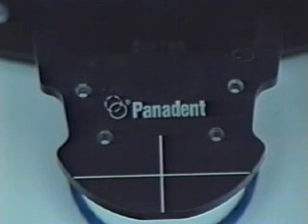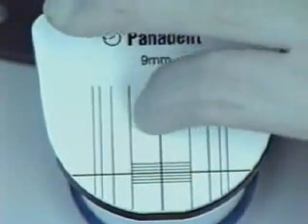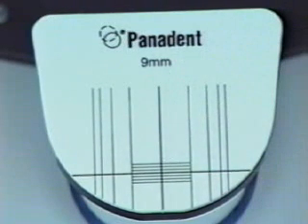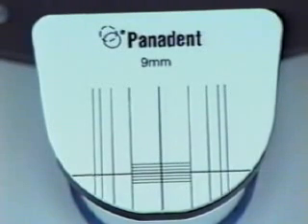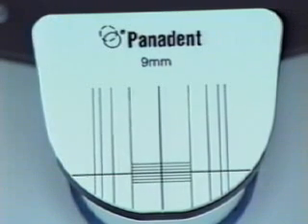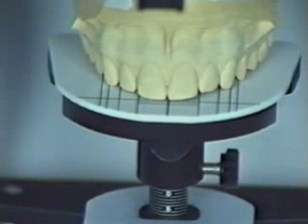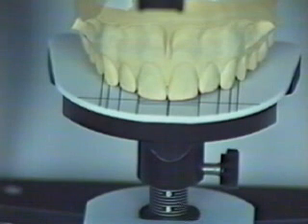In addition, there are seven different pre-printed waxing guides that can be positioned on the adjustable mounting platform. The seven different guides have been determined based on different widths of the central incisor. These guides are also reusable. The maxillary cast can now be repositioned into the golden proportion guide, and then the proportions can be pre-visualized prior to making any changes.